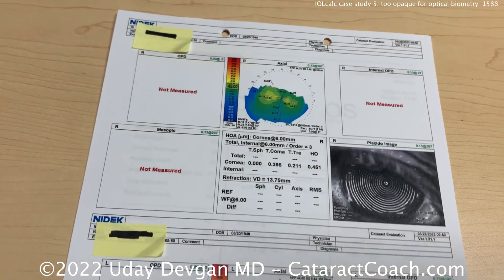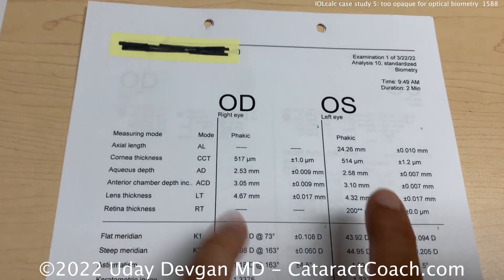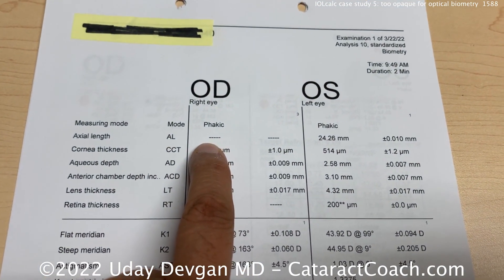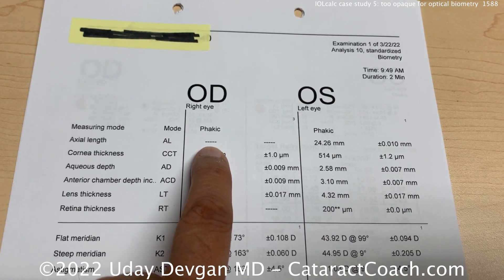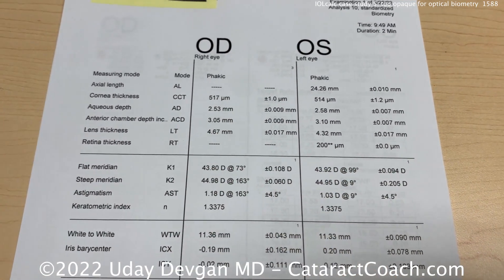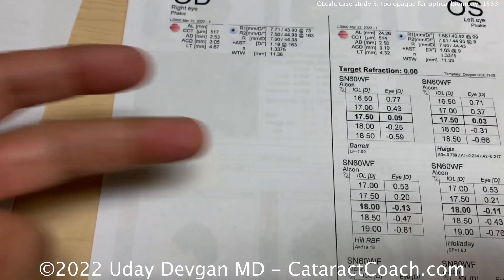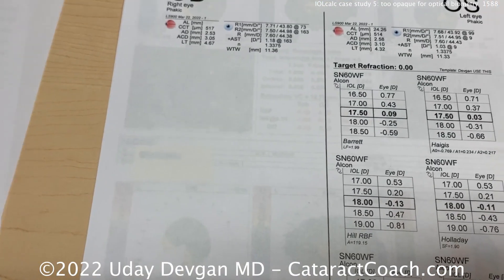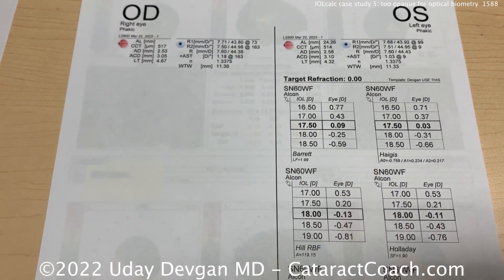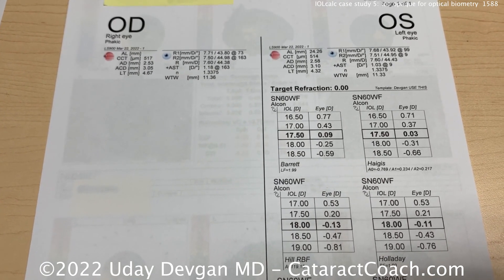When you go to do his biometry, it's really hard for the machine to piece together an axial length for the right eye. Everything else looks okay, but because you can't get that for the right eye, there are no calculations, no axial length. The left eye you have something. The patient doesn't have any old glasses to reference, so you don't know if there's a history of anisometropia.